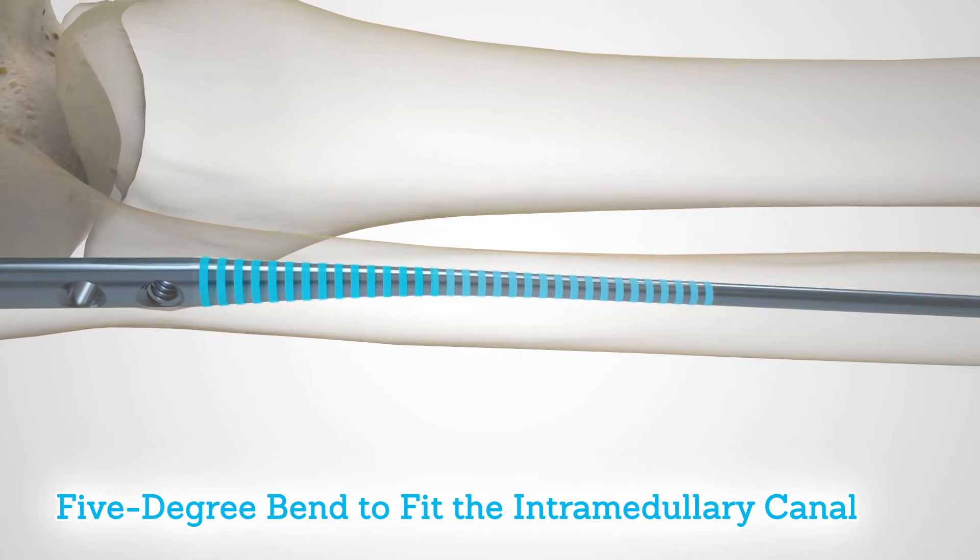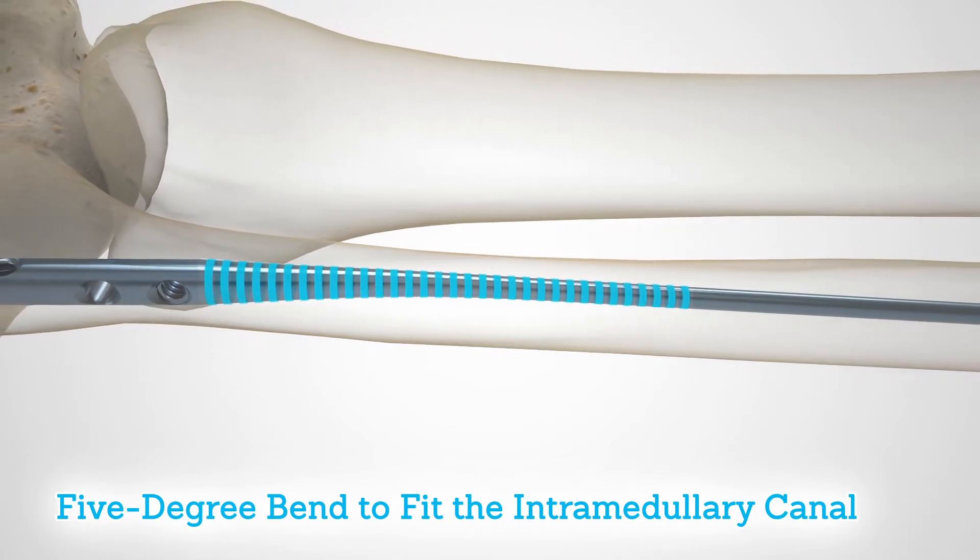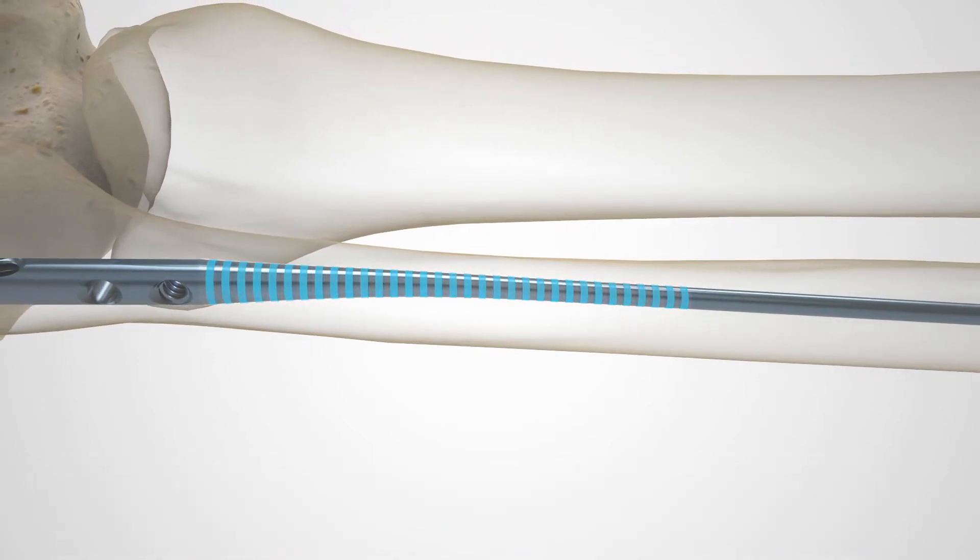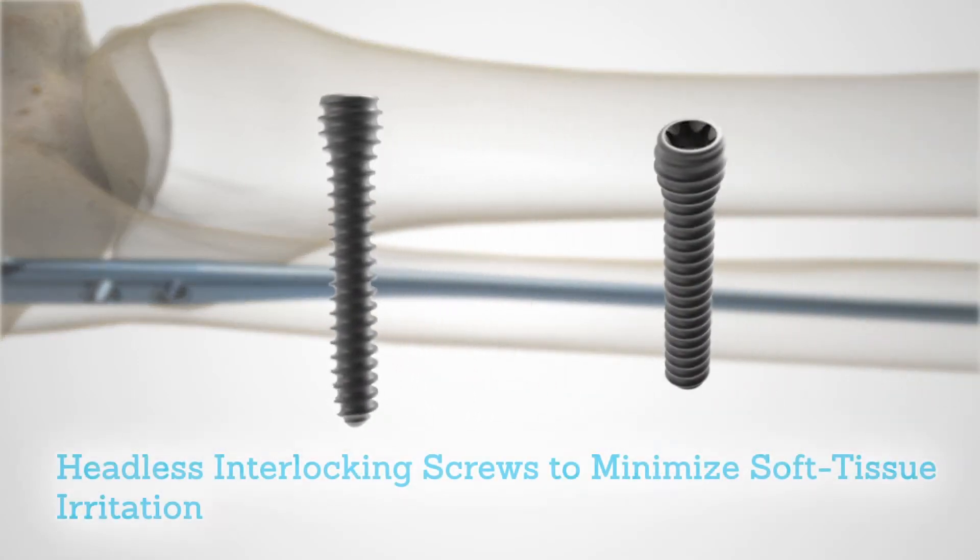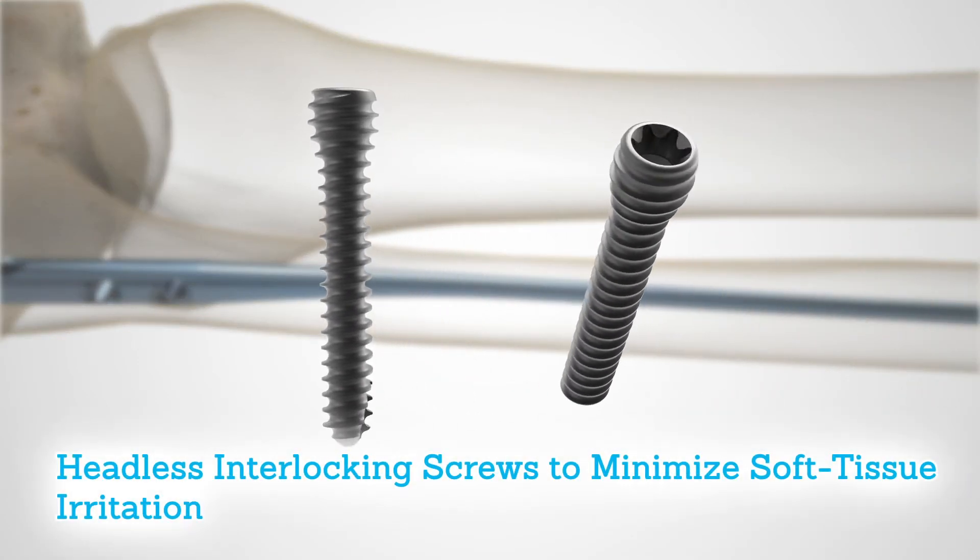Designed with a five-degree bend intended to fit the intramedullary canal, the nail accepts headless interlocking screws to minimize soft tissue irritation.